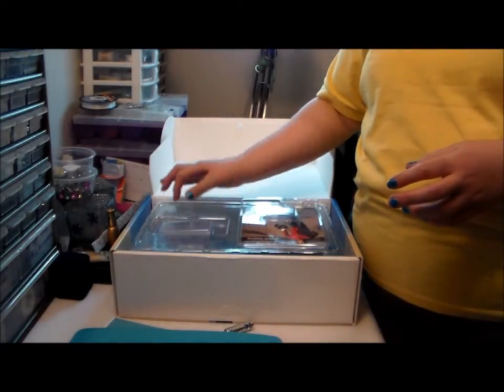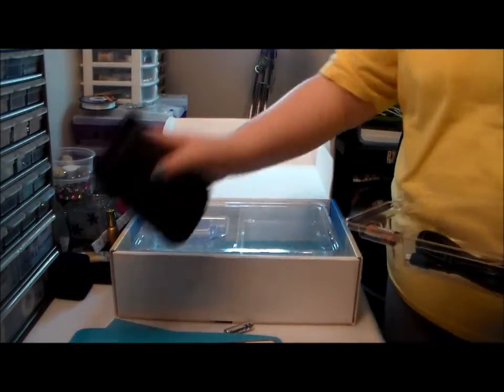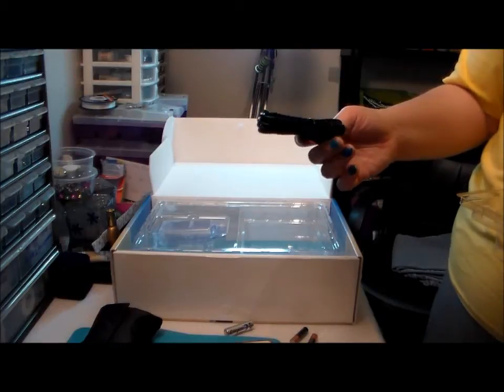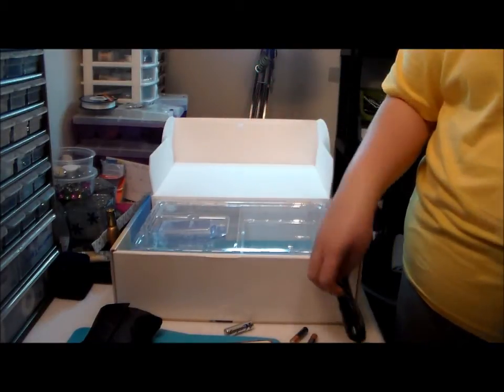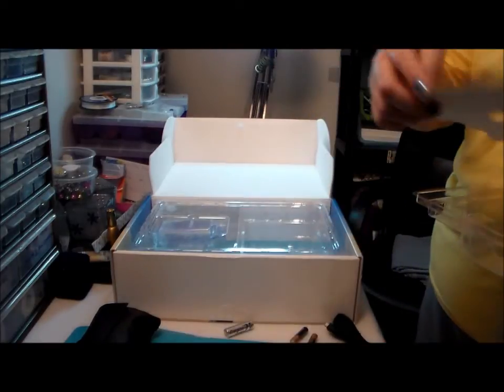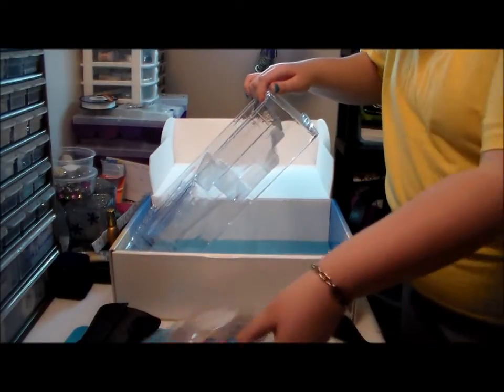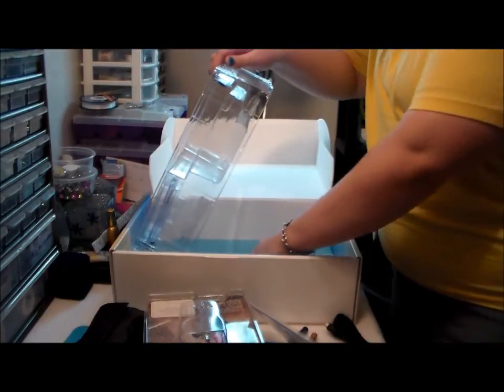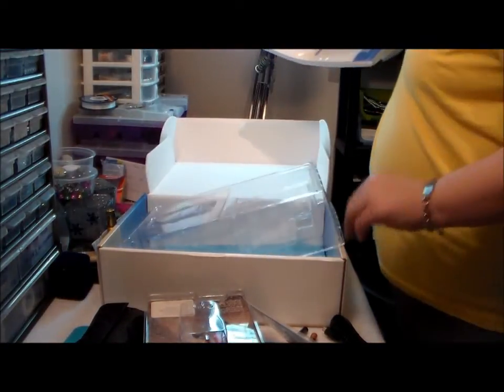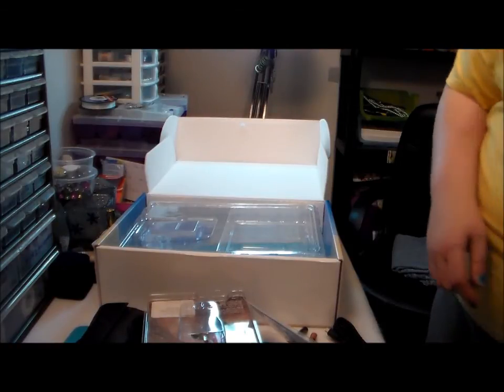I thought I'd share that with you — I wasn't going to, but I got too antsy. Oh, there's the battery! This must be the cord where you can put all your data from your pump — or from both of them — onto your computer. Christy, read the freaking manual! There's a clip in there and I ordered one. Oh, there are more books. Is that a CD? Okay, sweet.